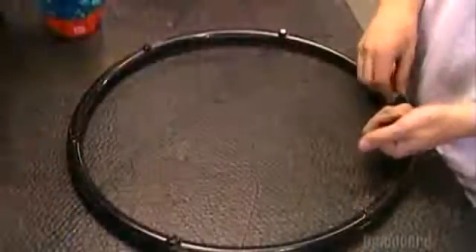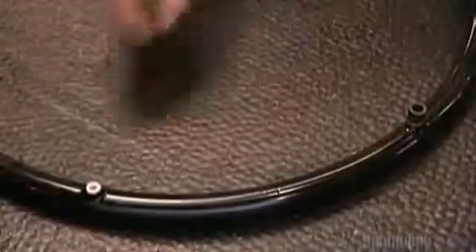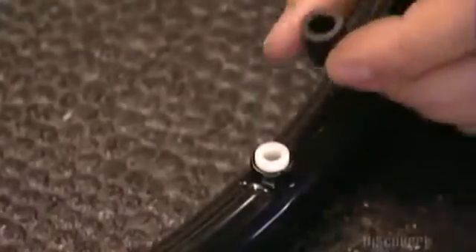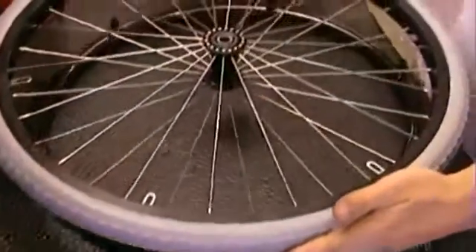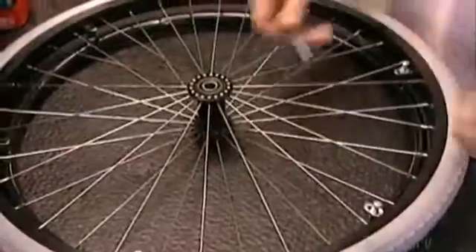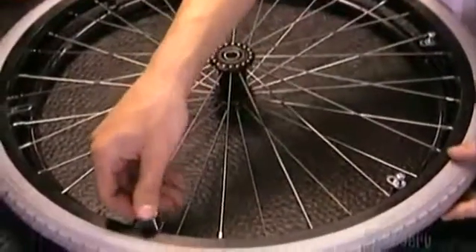Workers install 12 washers, called spacers, along the hand rim. Six of these 1cm spacers can be removed later to adjust the chair's overall width if necessary. The spacers on the hand rim align with the brackets on the wheel.